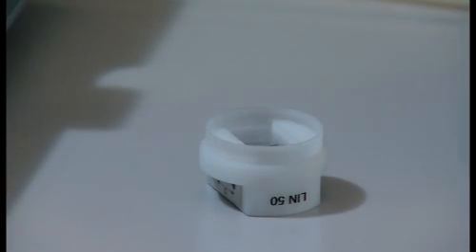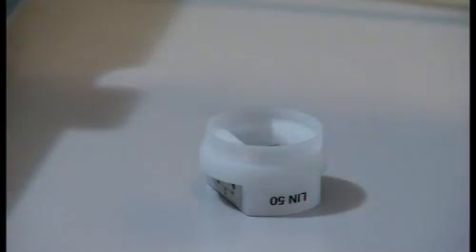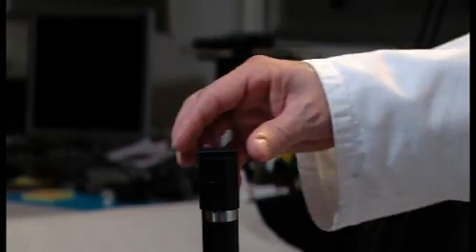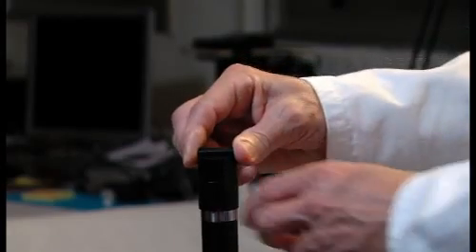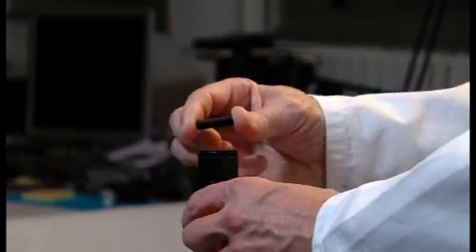The Compact Touch STS boasts a number of innovations including the checking of measurement accuracy. The checking tool supplied with the device must be filled with demineralized water.